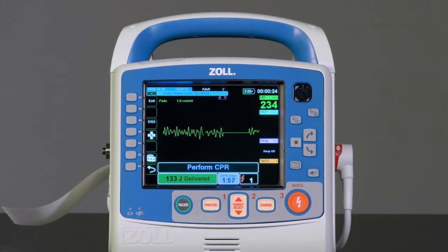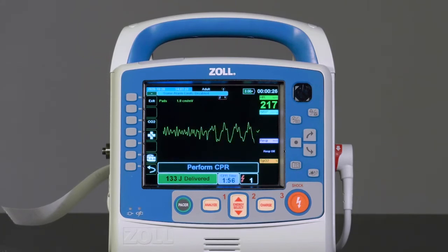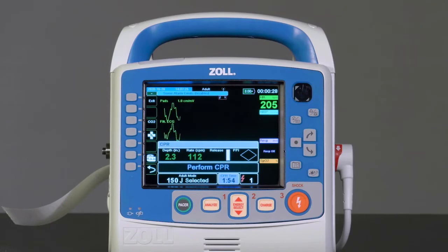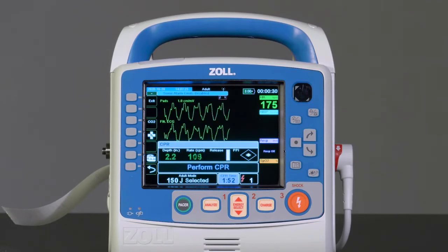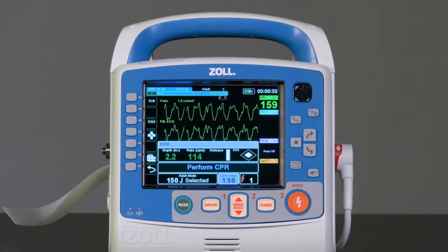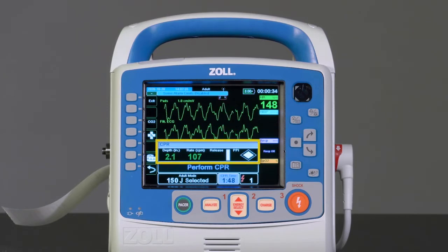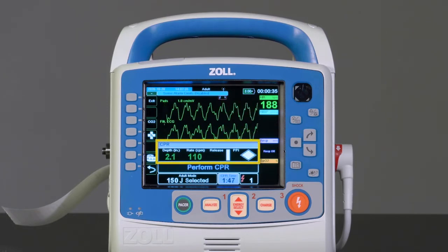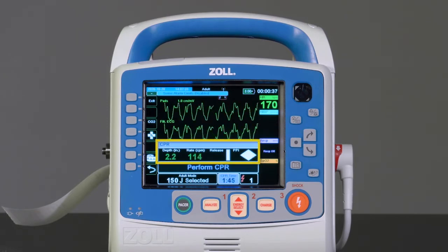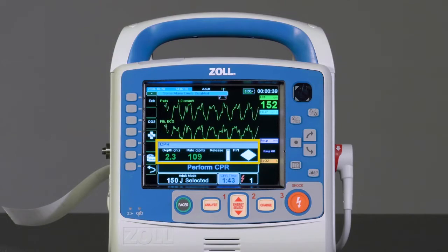After the shock is delivered, the provider is prompted to perform CPR. Resume compressions. If Zoll CPR electrodes are in use, real CPR help technology is enabled to help provide high quality CPR to the patient.